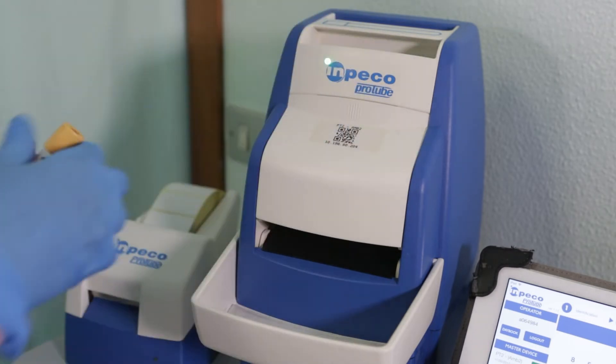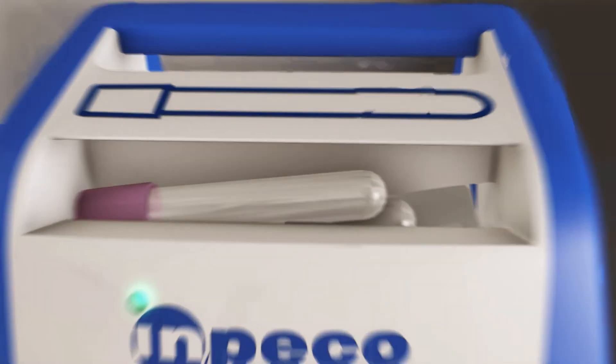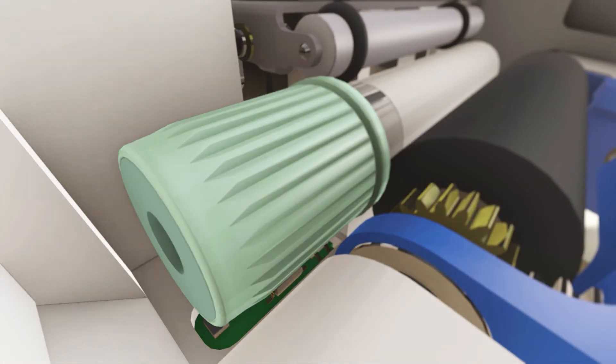Thanks to its patented technology, ProTube identifies the right tube through smart sensors able to detect the cap color and the length.